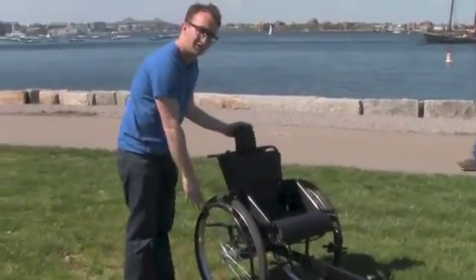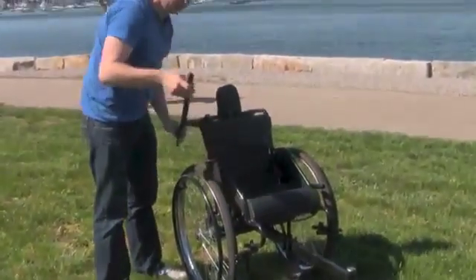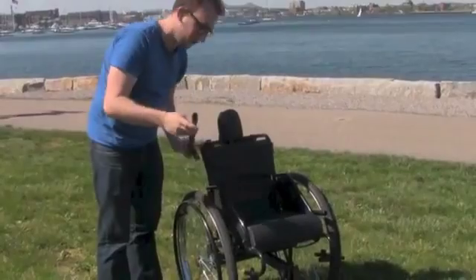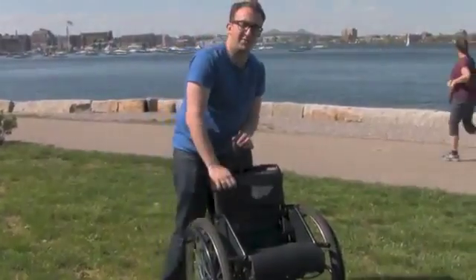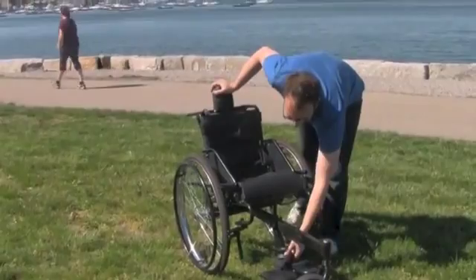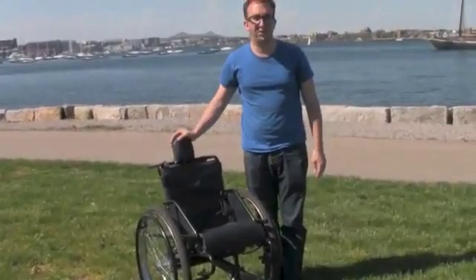The LFC is a standard three-wheeled wheelchair with a large front wheel that makes it easier to roll over obstacles. It's propelled by two levers, one on either side, which go into the couplings on the chair. It has a set of chest and abdomen straps to hold you into the seat, an adjustable footrest with foot straps, a storage bag, and a back pad to keep you in proper pushing posture.